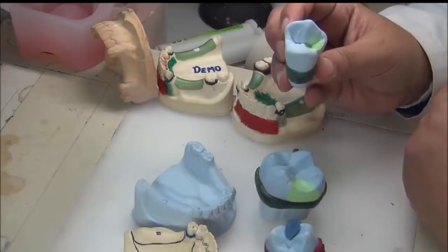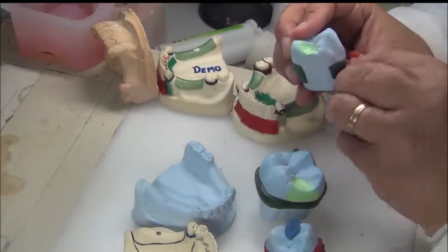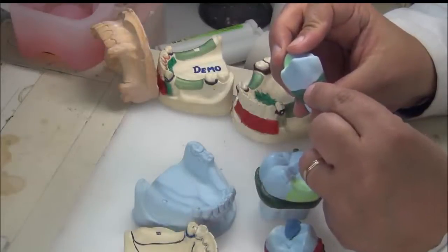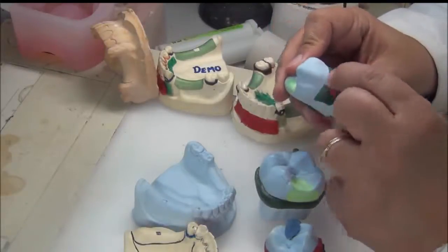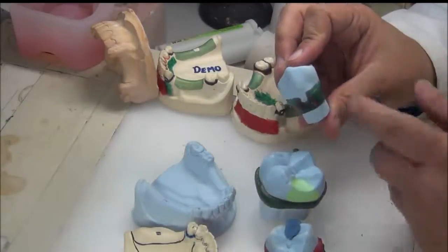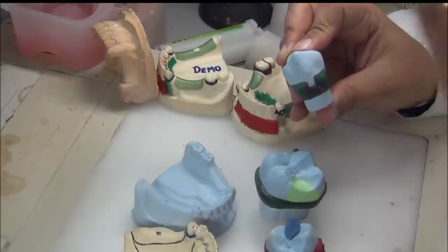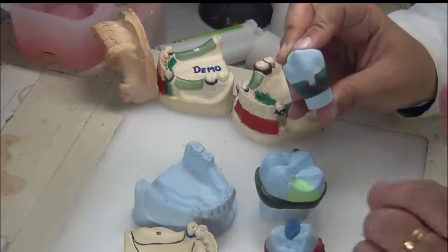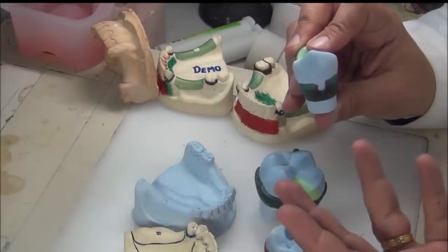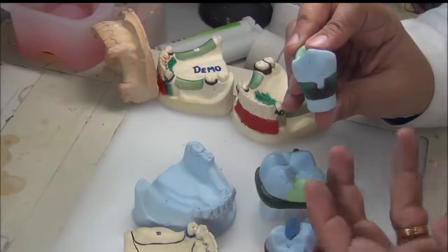After parallel block out is done, we told you to expose the utilized undercut. But when this turns into refractory material — all one color — you cannot recognize where your undercut is. So we add shaped wax, also called ledging. The only component of an RPD that goes into undercut is the retentive arm of the clasp — either occlusal approaching or gingival approaching. I need to visibly mark where the tip of my retentive arm ends.